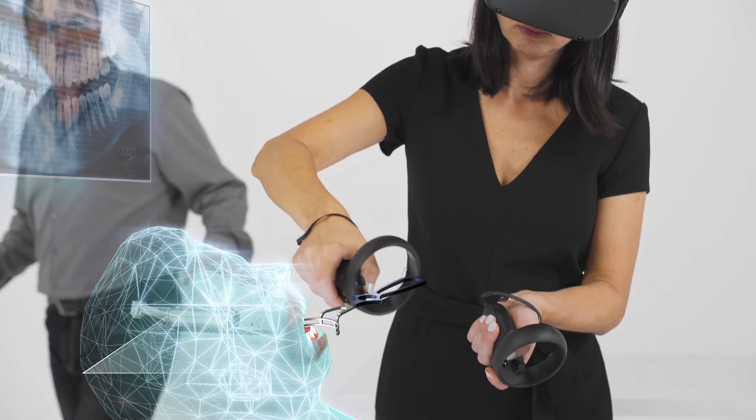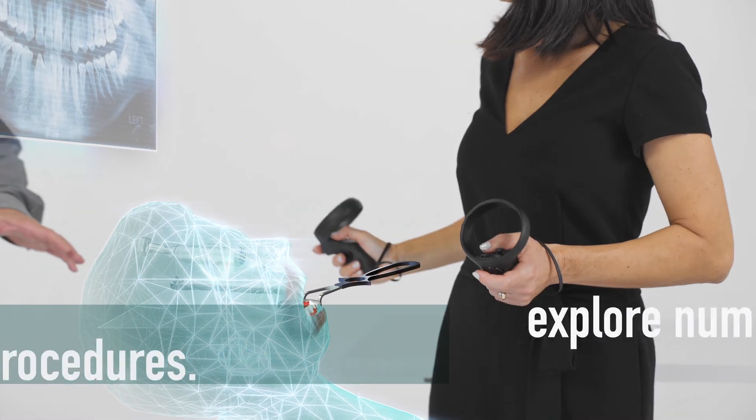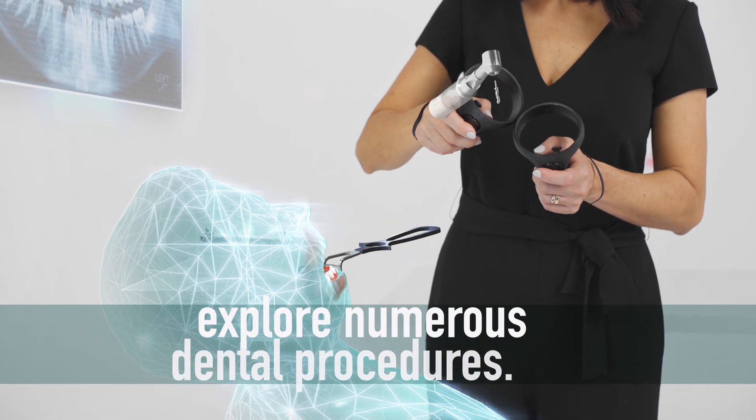Explore numerous dental procedures on a virtual patient. Discover and conquer new techniques.